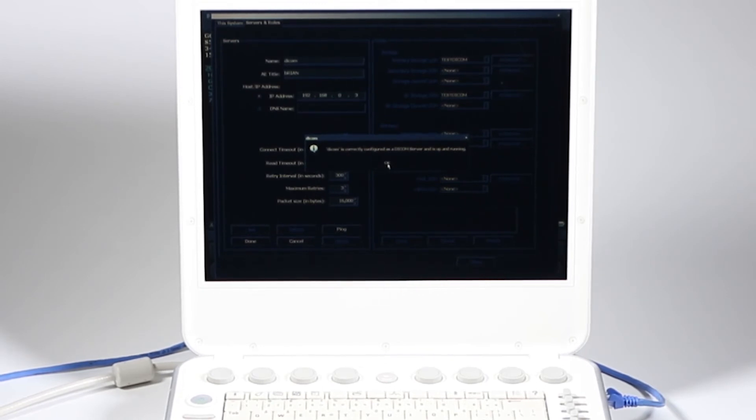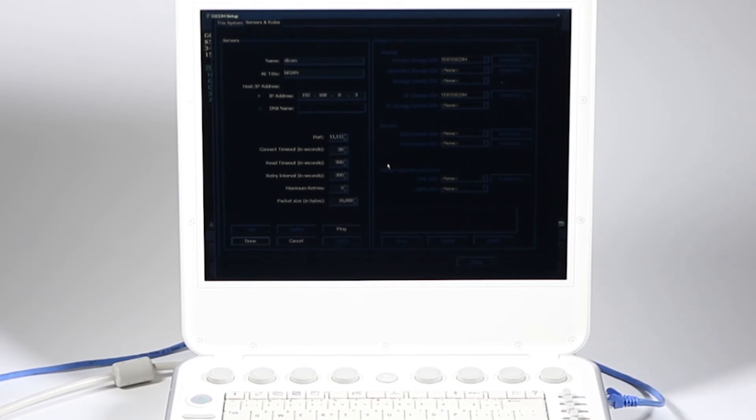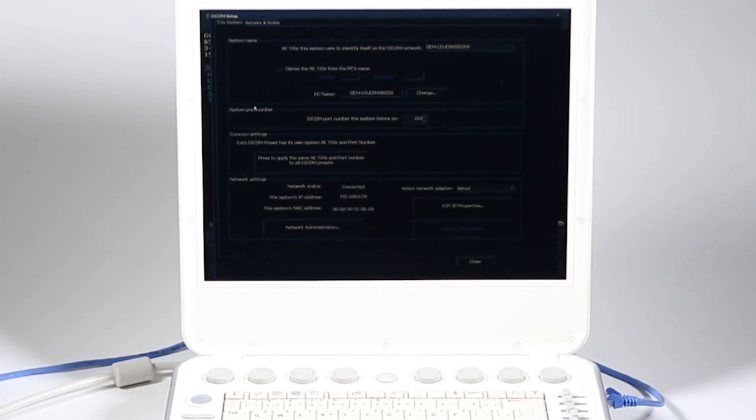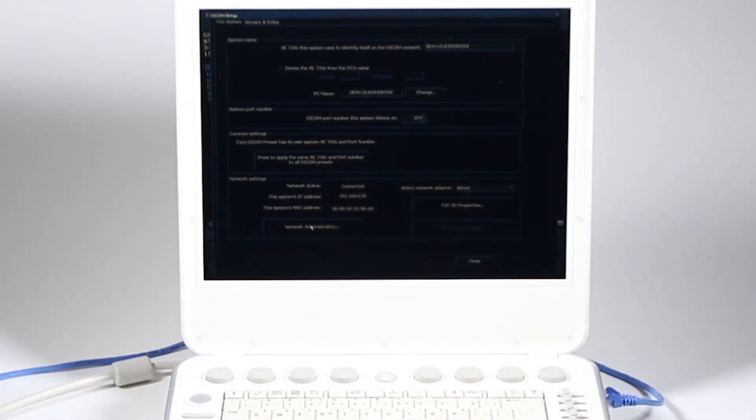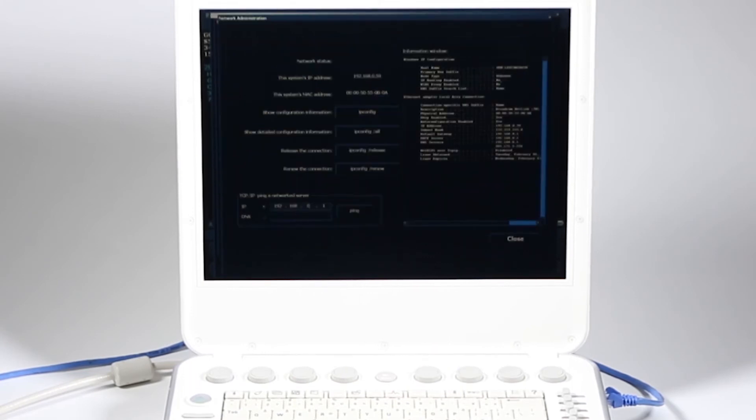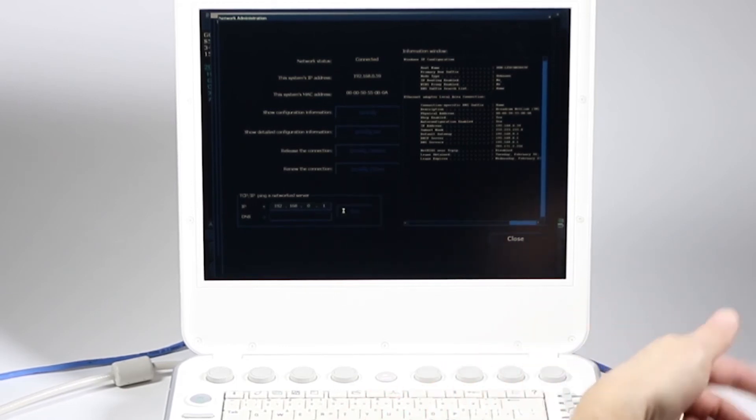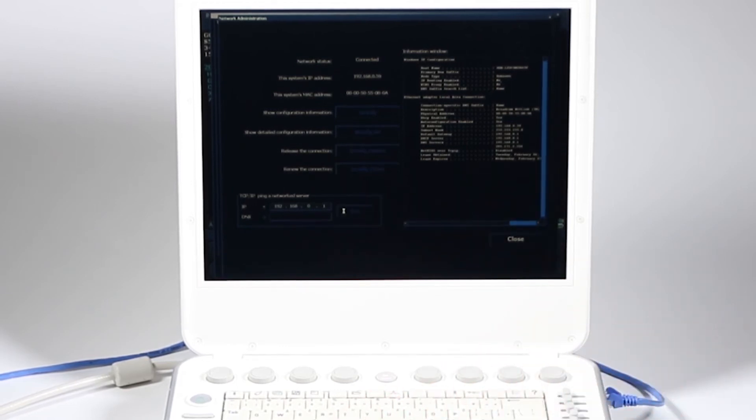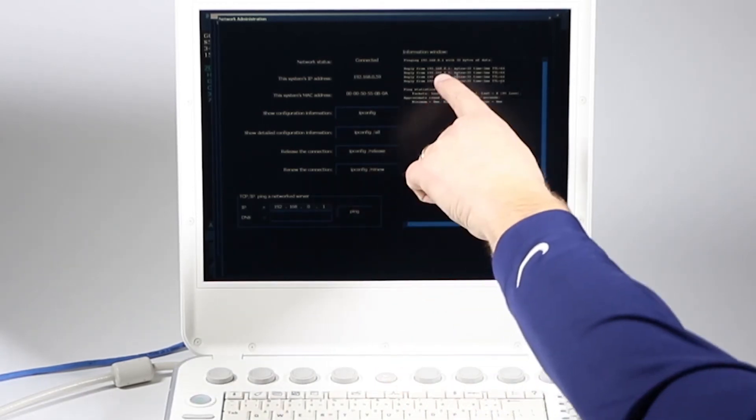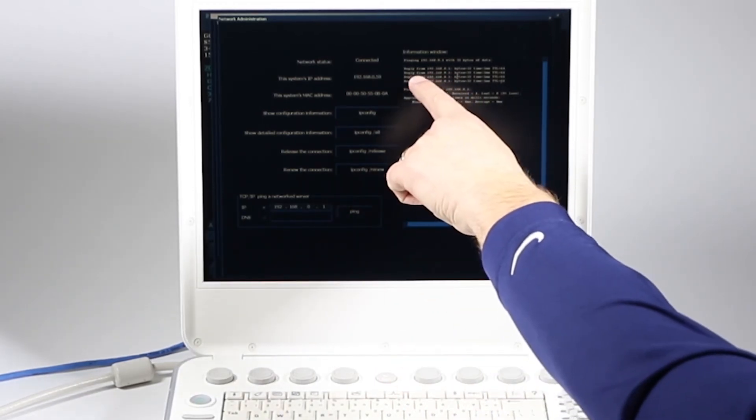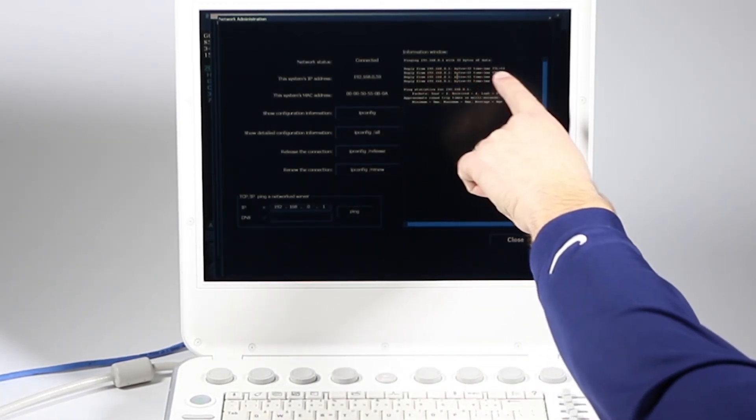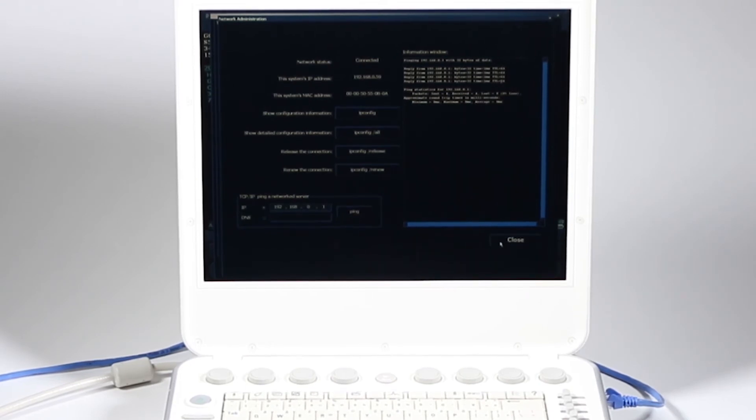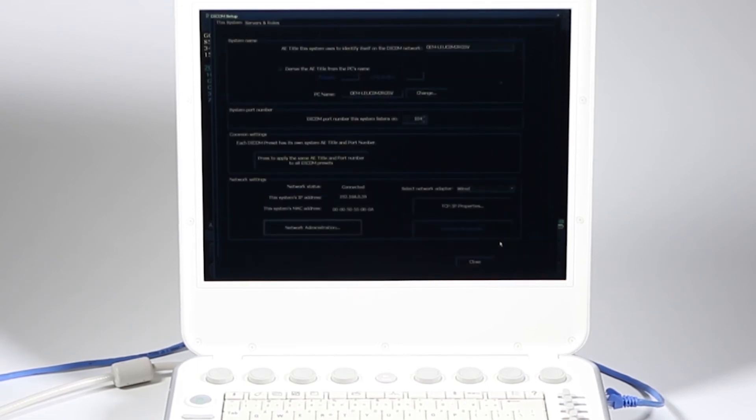Now, problem is, a lot of people have issues here. If you can't ping here, but you were able to ping when it says this system and I don't have a network status or connected, or I couldn't ping the server here, this is what your local IT person would give you to ping. You have to be able to ping there before you can ping your DICOM. Up here, my ping says reply from, okay, but if it was not working, it would say timeout. So if you're having problems with that, contact your IT person.